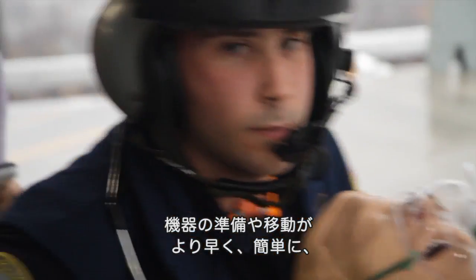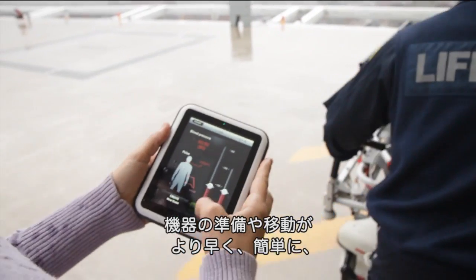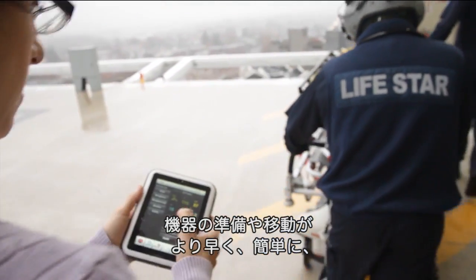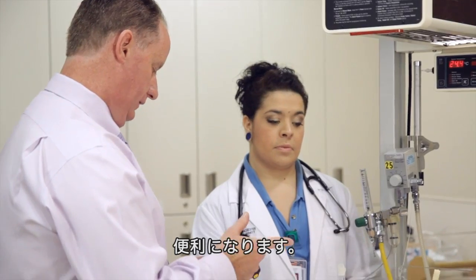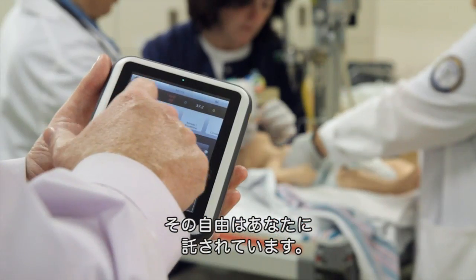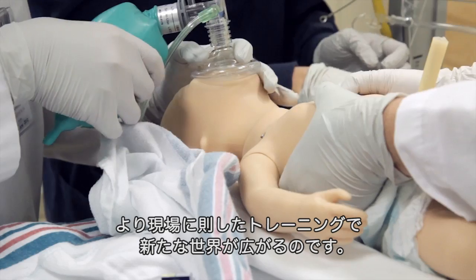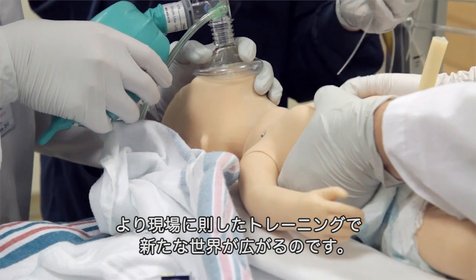This new level of mobility will make setup time and transportation faster, easier, and more convenient. But ultimately, it's the freedom you'll have to make training more clinically relevant that will change everything.